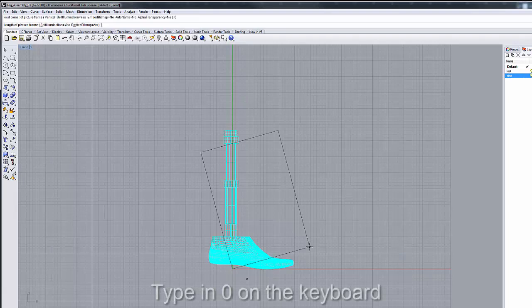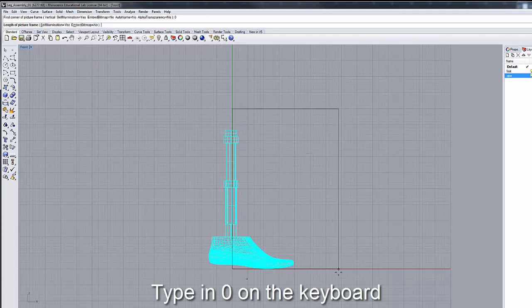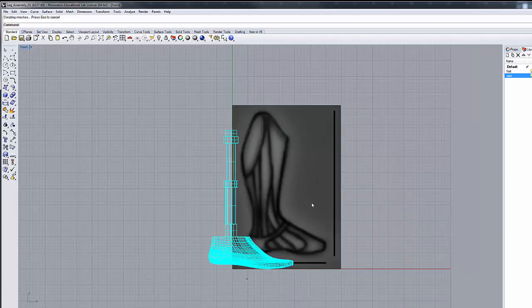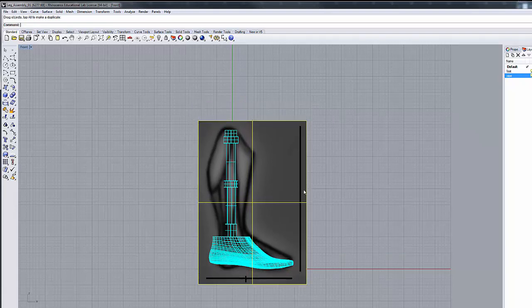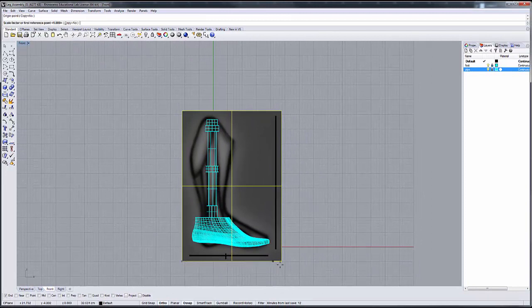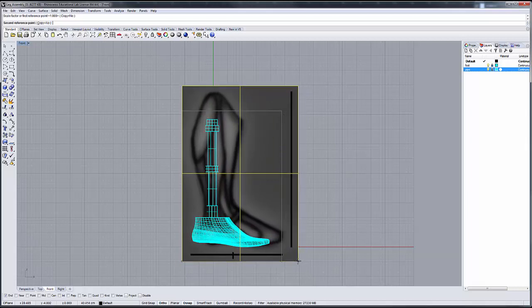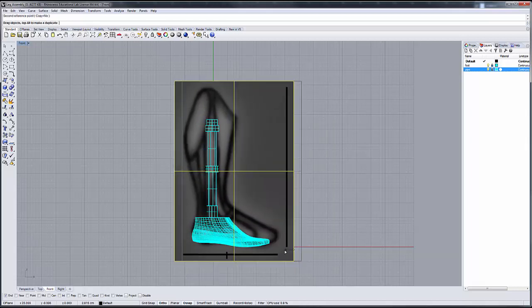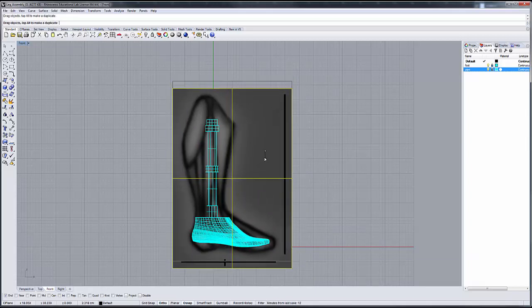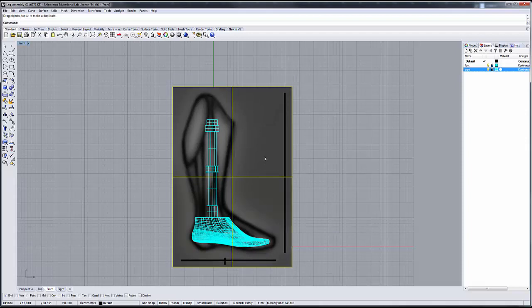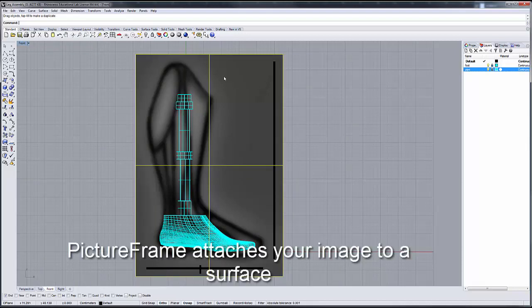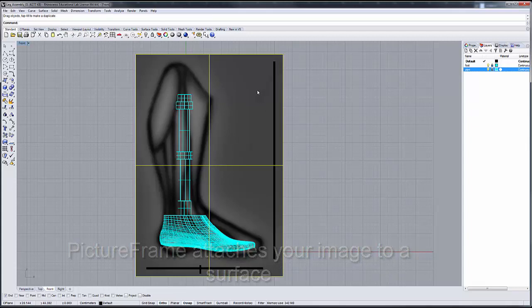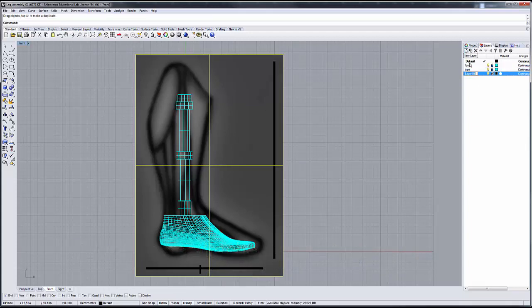I'm going to bring in the right image, starting at zero. With my ortho snap turned on, I'm going to scale up my image. Picture frame is a very good method. I'm going to bring this over and roughly align it to the foot and scale it a little bit so that it covers the foot properly. Then I'll slide this over — you can see the foot fits into that design. The nice thing about using the picture frame command is that it brings in the picture and attaches it to a rectilinear NURBS surface. Because it exists as an entity, we can create a new layer for it — I'm going to call this slide right.